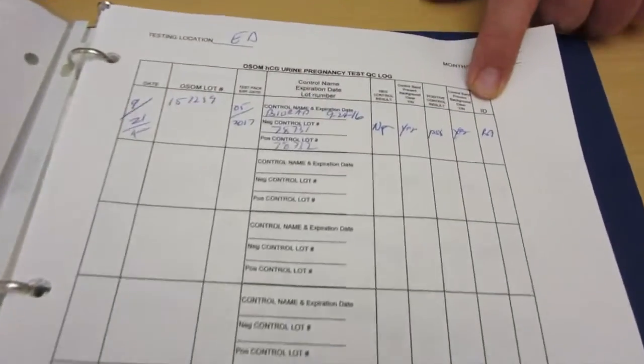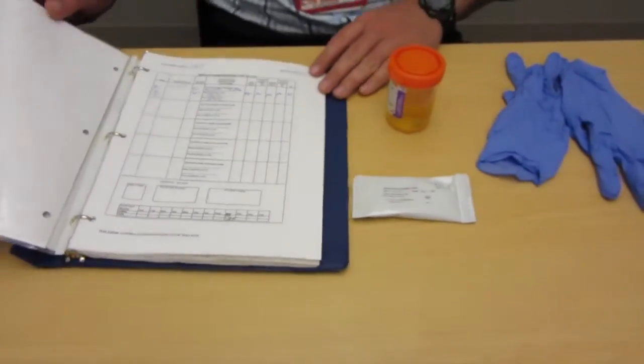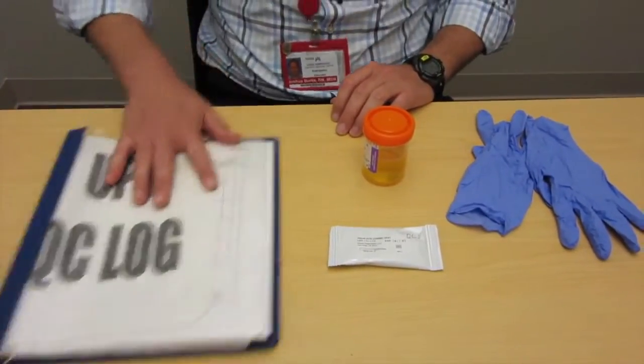151239 and note that it has actually been QCD in lab. Once it's been QCD in the lab, the whole lot is good to go and ready to be used. So the testing is pretty simple, but that's step one.